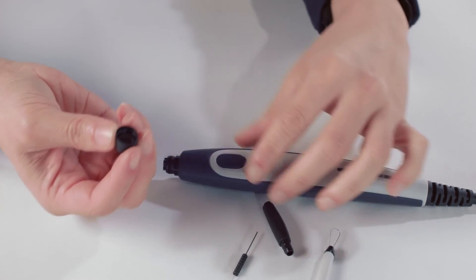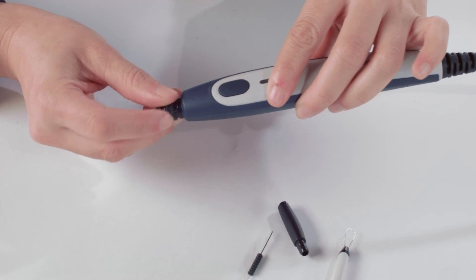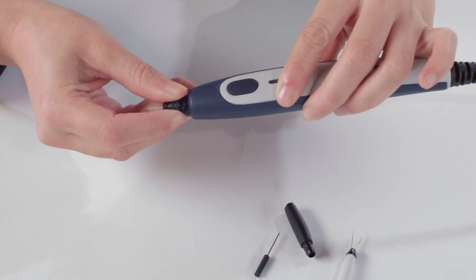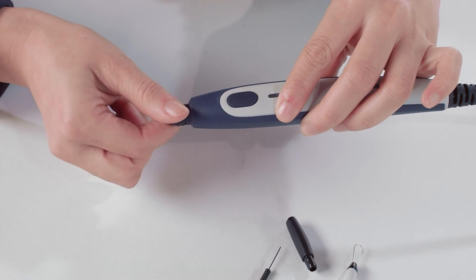Place the probe tip back, making sure that it is inserted appropriately onto the probe. The force of tightening the cap will tighten the screw sufficiently.